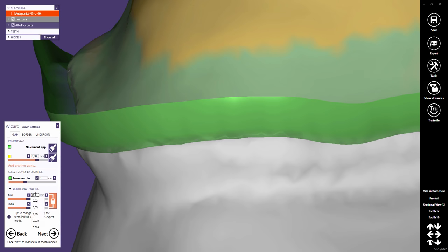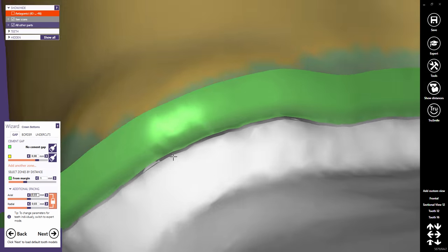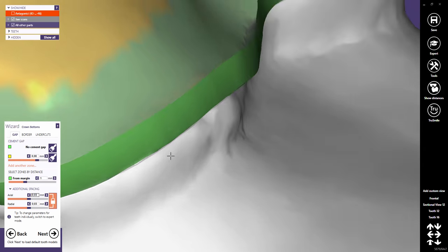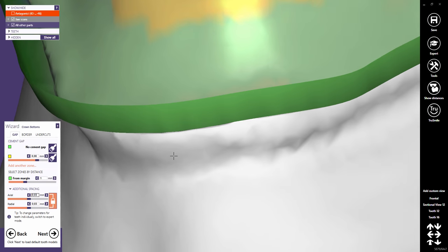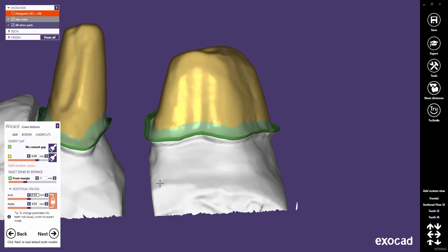Setting this parameter to zero means that the green area and the margin will have no gap. Some people might want to use these parameters to create a thin gap in the green area. But it is important to know that these values will be applied in addition to the cement gap — in this case, resulting in a real cement gap in the yellow area of 0.11 mm. It is recommended to keep both sliders locked to ensure equal space in all axes. Nonetheless, you can unlock the sliders and set an individual parameter for each.